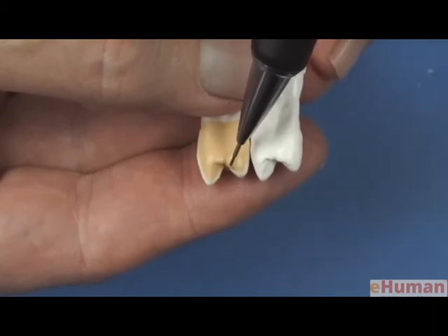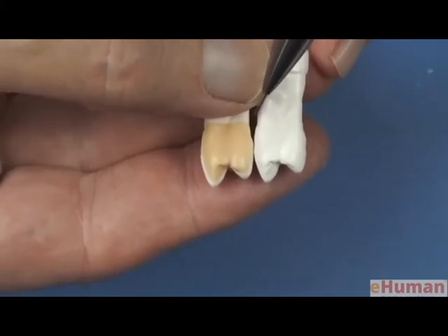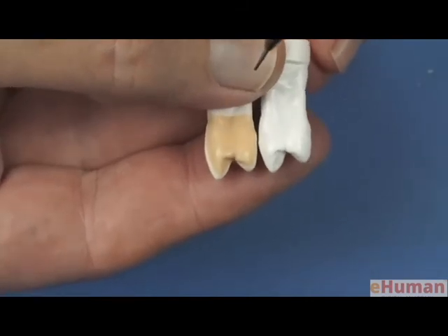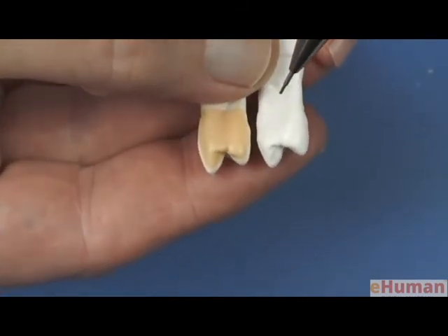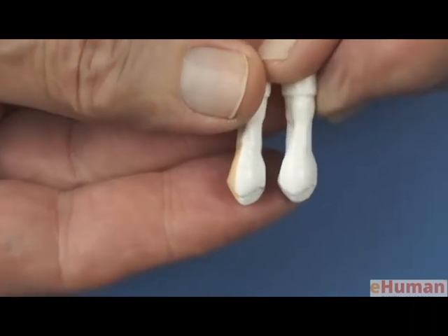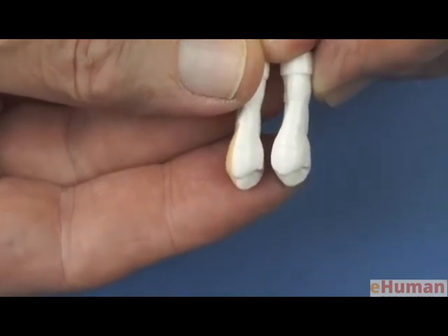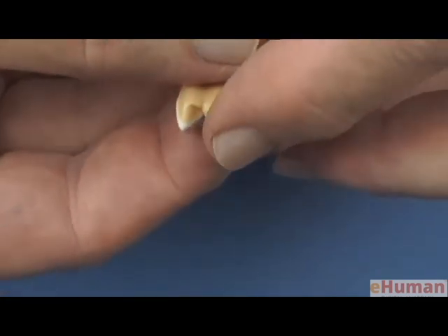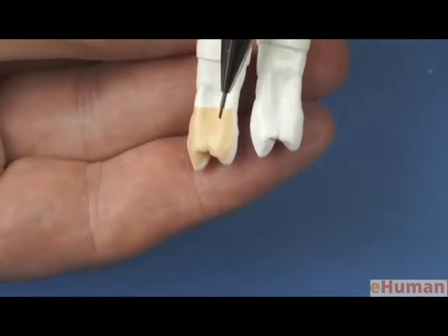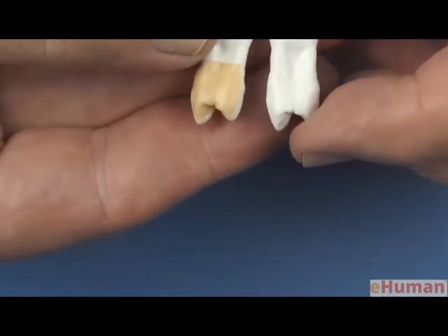And then you'll notice that the marginal ridge lingual to that mesial marginal developmental groove has a little bit of a convexity to it. Actually, you can see a little S-shaped curve there in that particular form that's present in the natural tooth. And then we'll turn it around to the lingual view. Make sure we have the proper cervical convergence to the wax pattern. And review the mesial surface where we have that large mesial developmental crown depression that transitions into a root depression. And we'll rotate those around again.